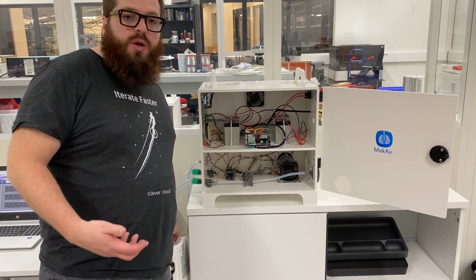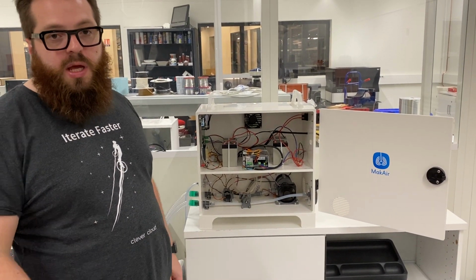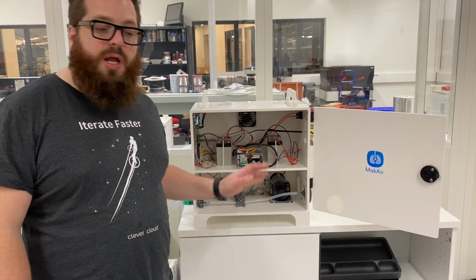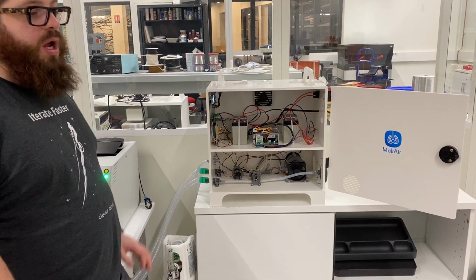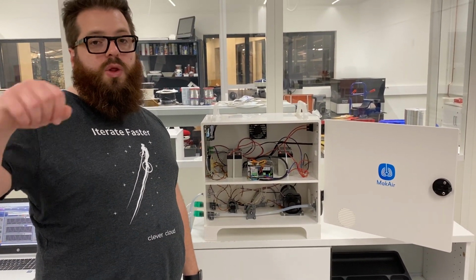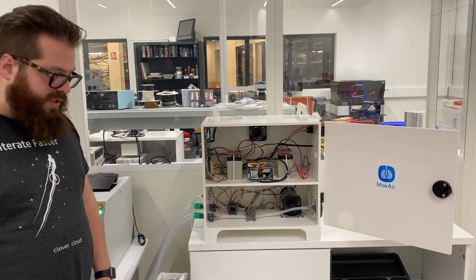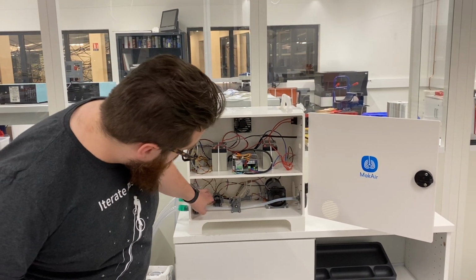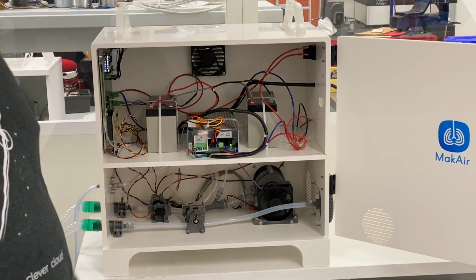Oxygen is how some patients will be treated by the physician, and you will be able to regulate the amount of O2 here. So it will be able to work either on the O2 from the wall in a hospital, for example, or on the O2 from a bottle like this. So you put the O2 on the system, then you have what we call the valve.